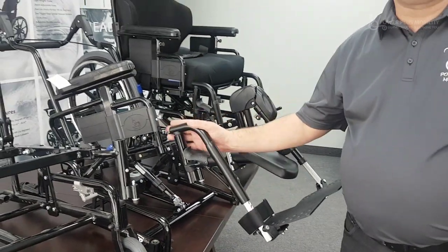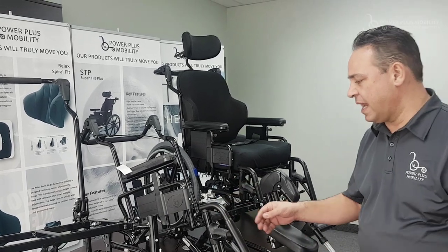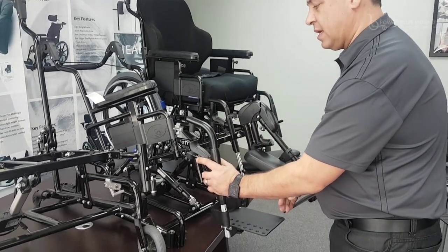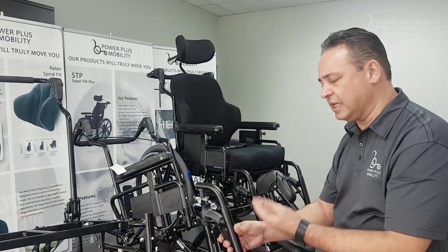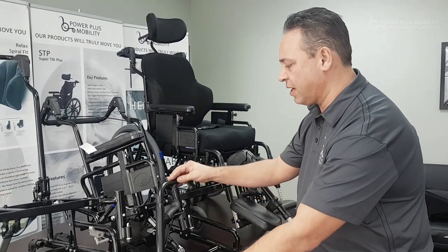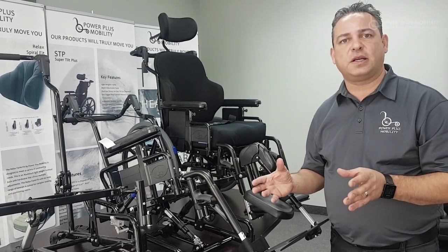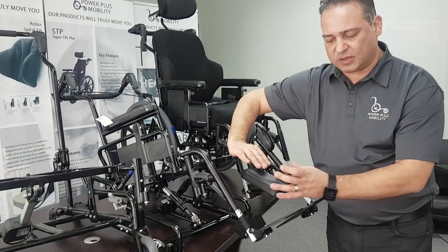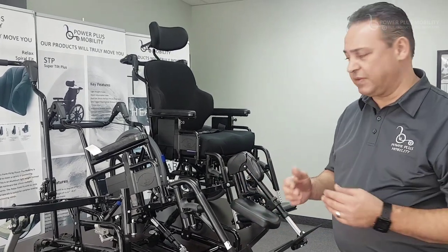The number of degrees makes a difference in the type of hangers as well. We have 60-, 70-, and 90-degree hangers. A 90-degree hanger sits on this angle and shortens the footprint of the chair — most commonly used for the pediatric population — but it limits leg length adjustability because the footrest would hit the ground. That's why we use 70- or 60-degree hangers on the market. A 70-degree hanger is for the general population. If an end user has tall legs, we use 60 degrees, which brings it out and gives more adjustability so it doesn't hit the ground and accommodates for longer legs.